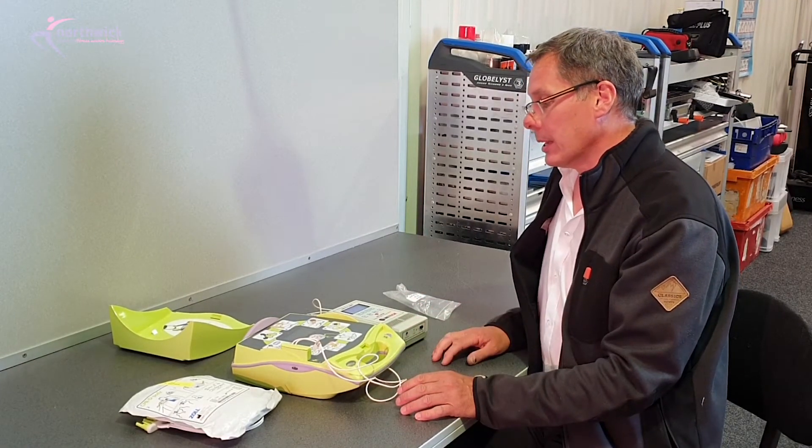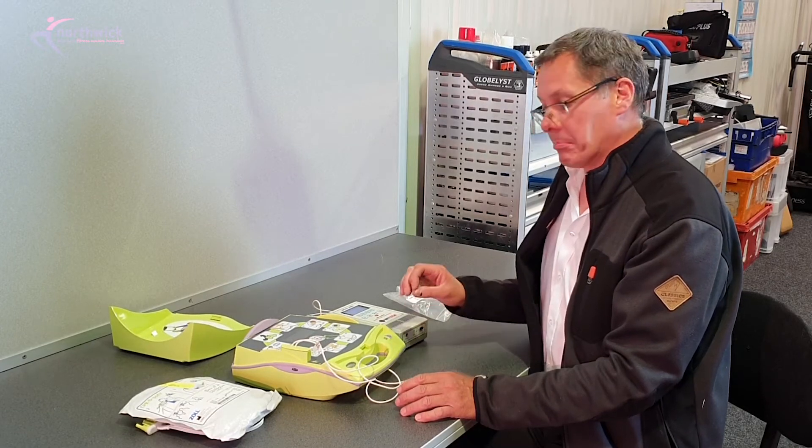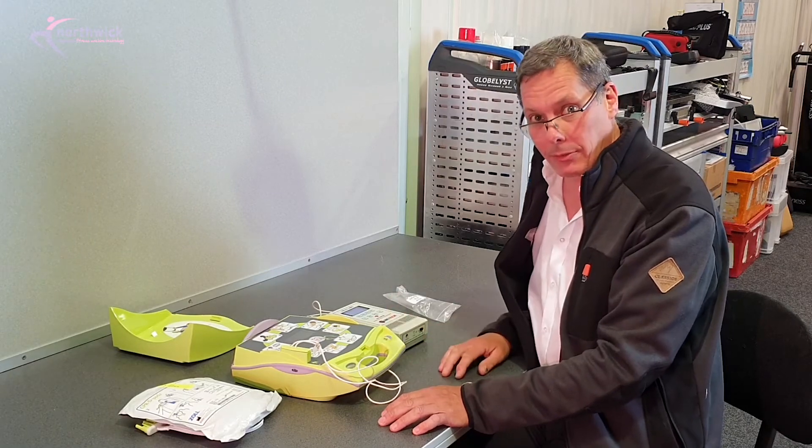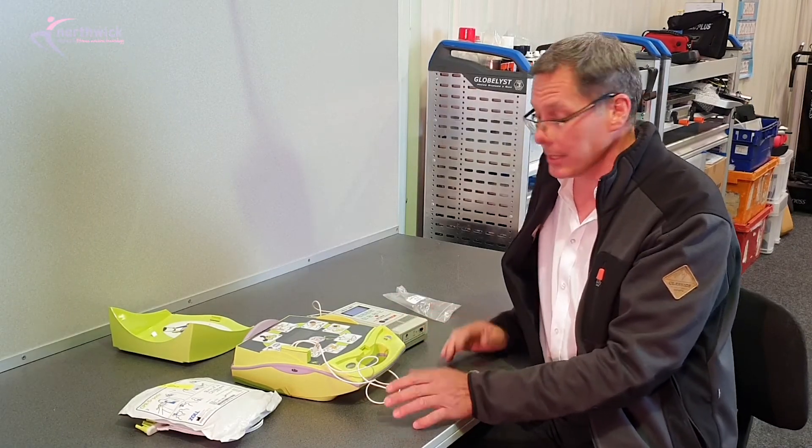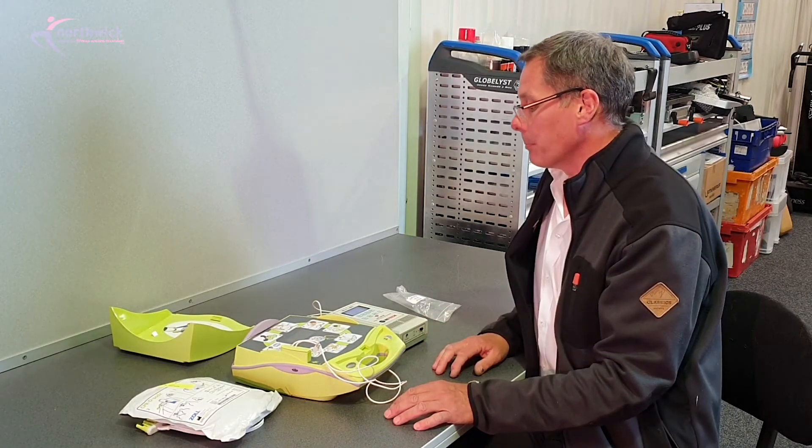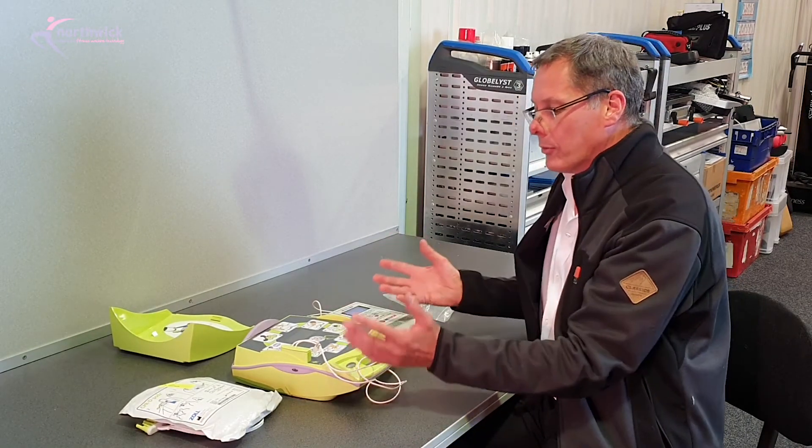You could of course send the device back to the manufacturer and get them to test it. Some manufacturers offer that service and some don't. But anyway, I hope that's kind of given you an overview.